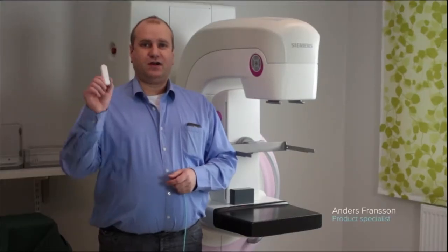Hi, in this video I want to show you how to measure with the X2MAM sensor.